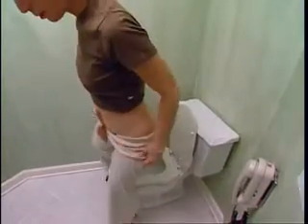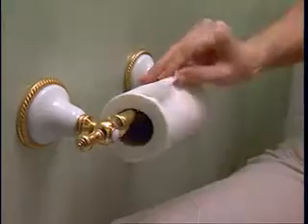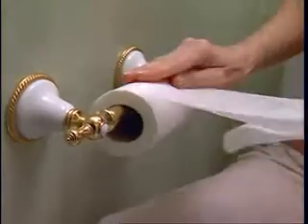Once you are out of the hospital and are moving around with less discomfort, you may find it more convenient to simply empty your pouch directly into a toilet. Practice these easy steps at home and you will find that emptying your pouch in any restroom will be simple, fast, and discreet. Sit back on the toilet and place the end of the pouch between your legs, or stand and lean over the toilet. To prevent splashing, place tissue into the toilet or empty the pouch while flushing. Then simply follow the same cleaning steps as demonstrated earlier.